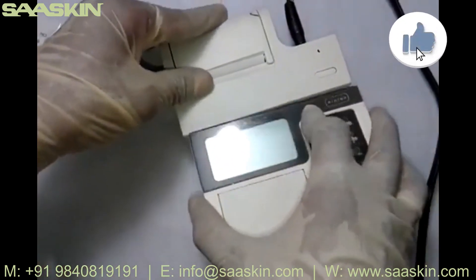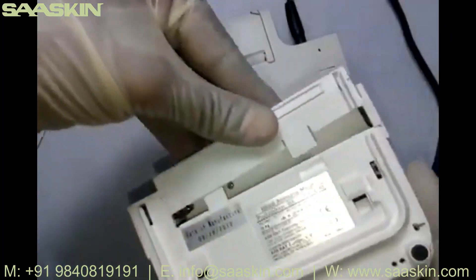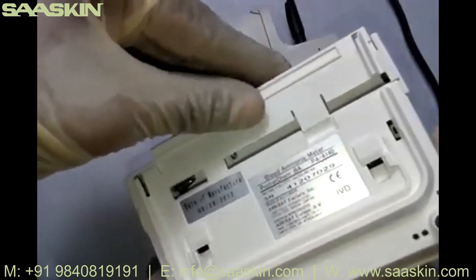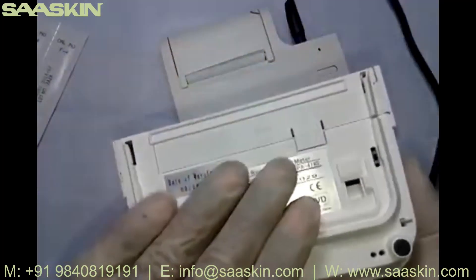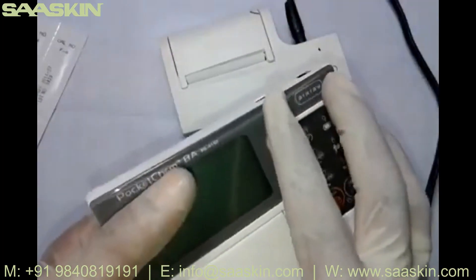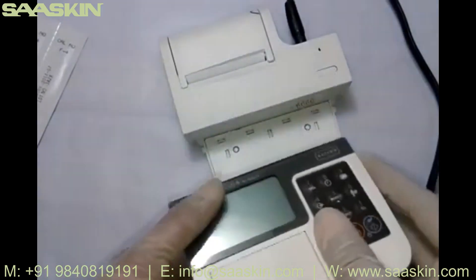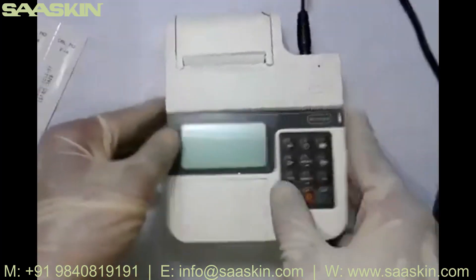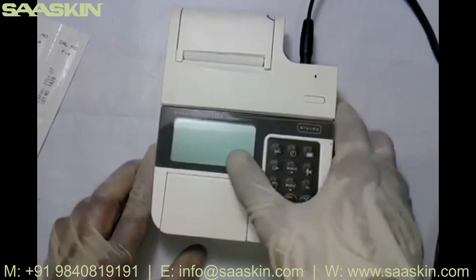At the back side of the instrument, it can also run on two AA pencil batteries, so there's no need to worry about the power supply when going to the patient bedside. You can carry the device, perform the test, take the reading, come back, connect to the printer, and take a printout if you want — or report the reading directly onto the lab report pad.